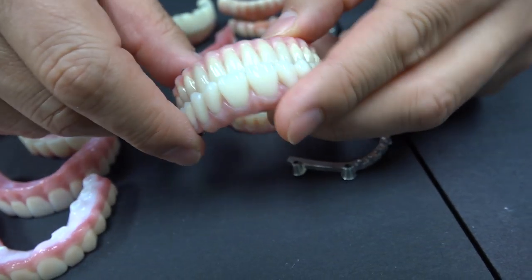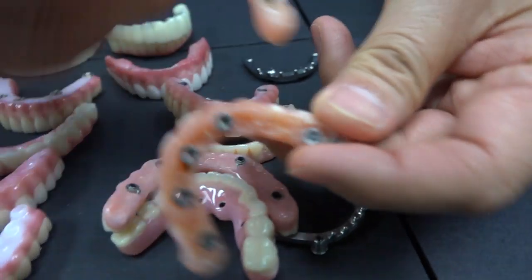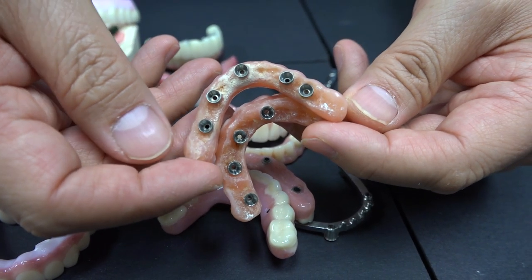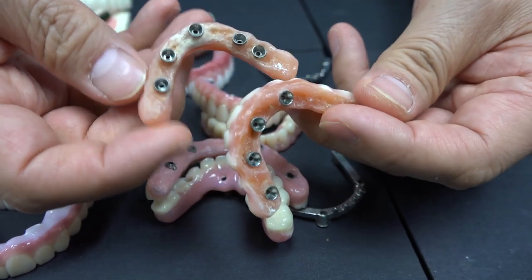Not only that, if they don't clean well underneath, you will get this kind of problem. After a couple of years later, they have to go to the dentist's office often, then they have to clean correctly inside — the bacteria or whatever.